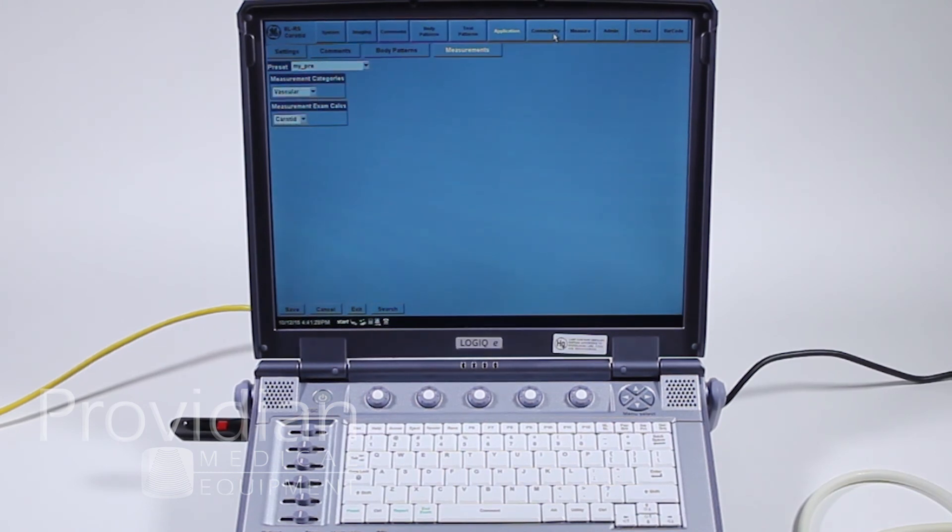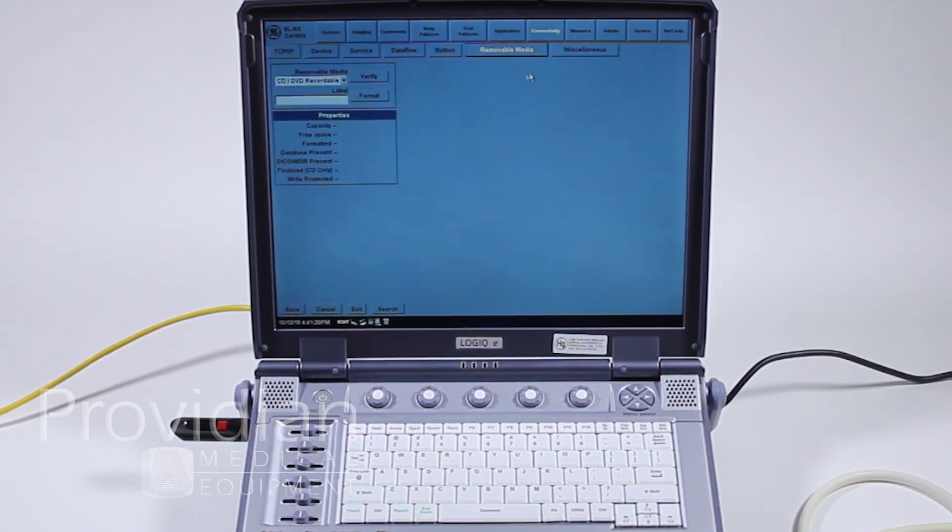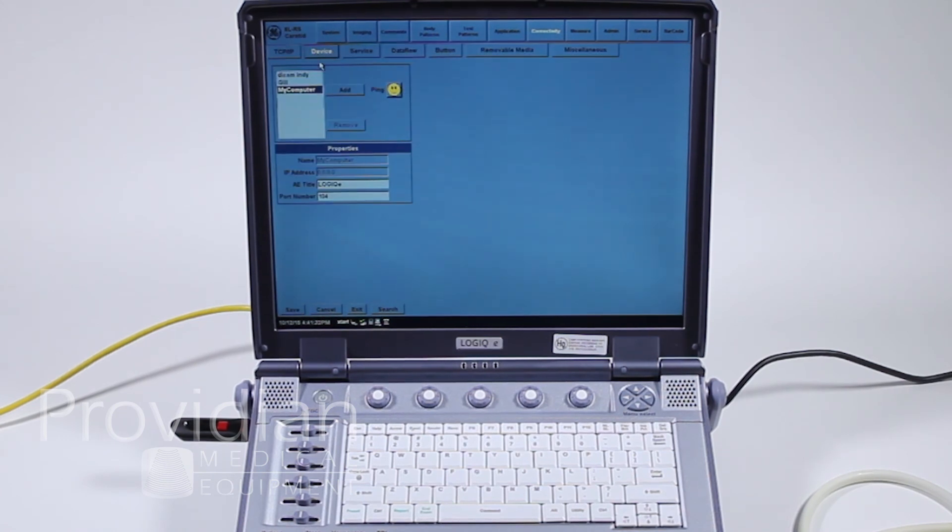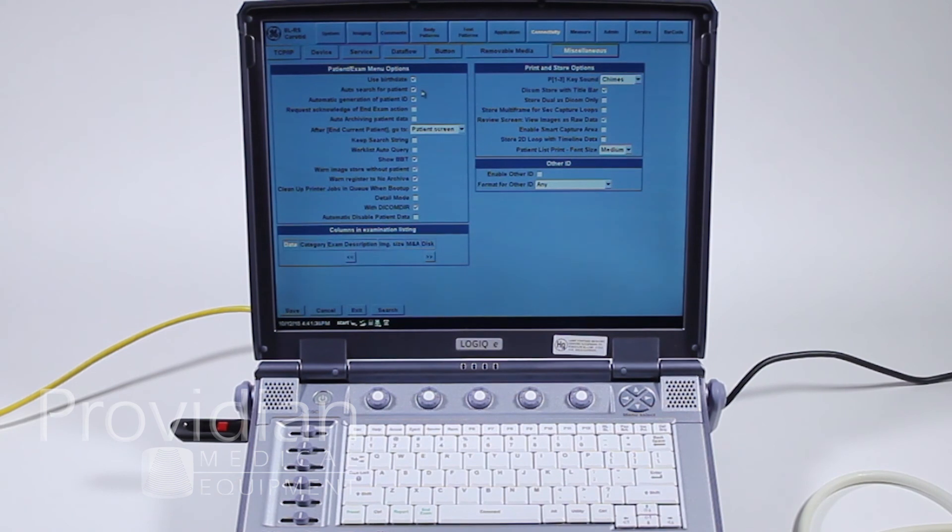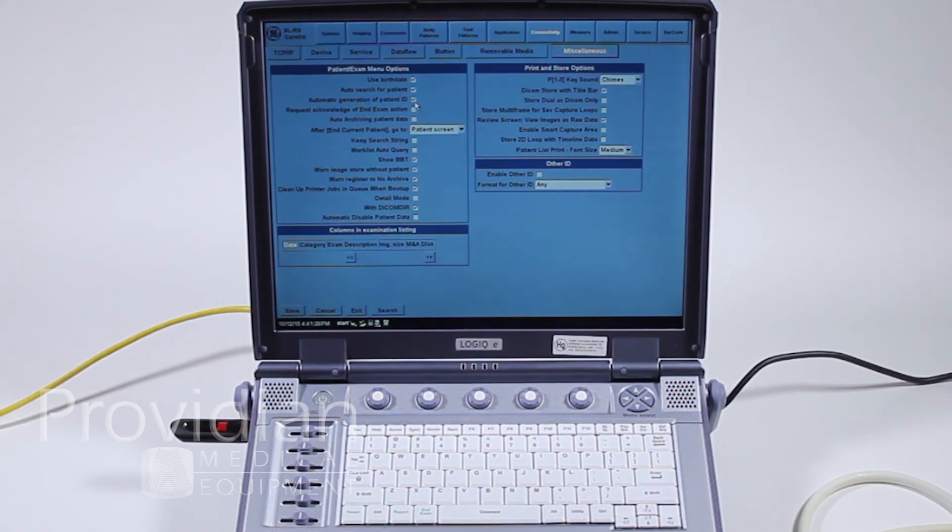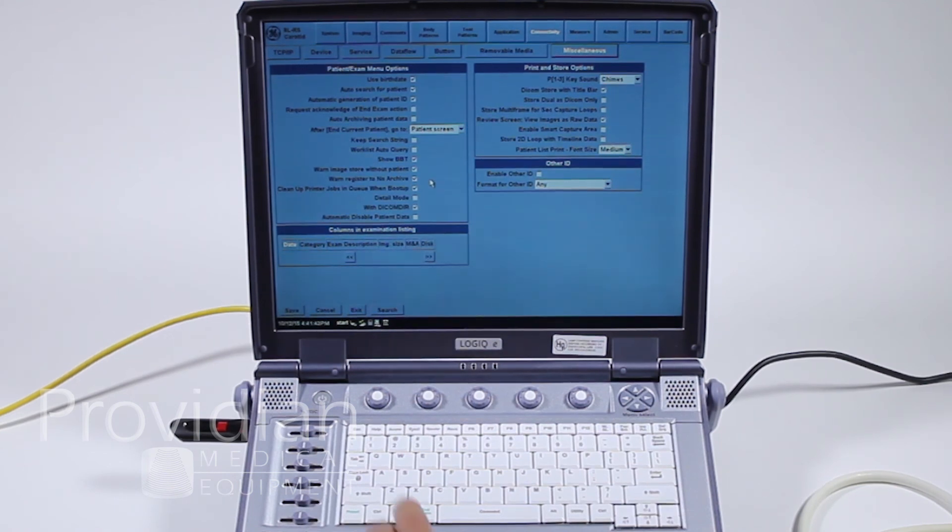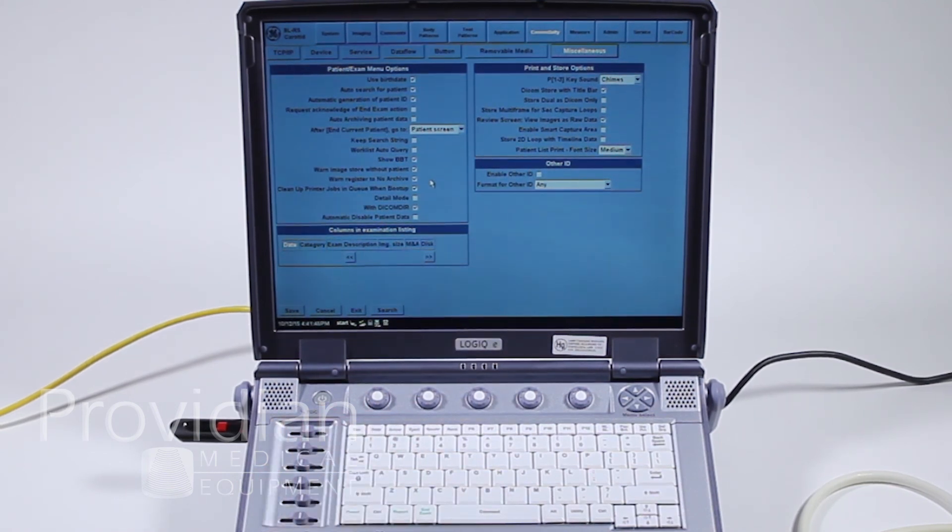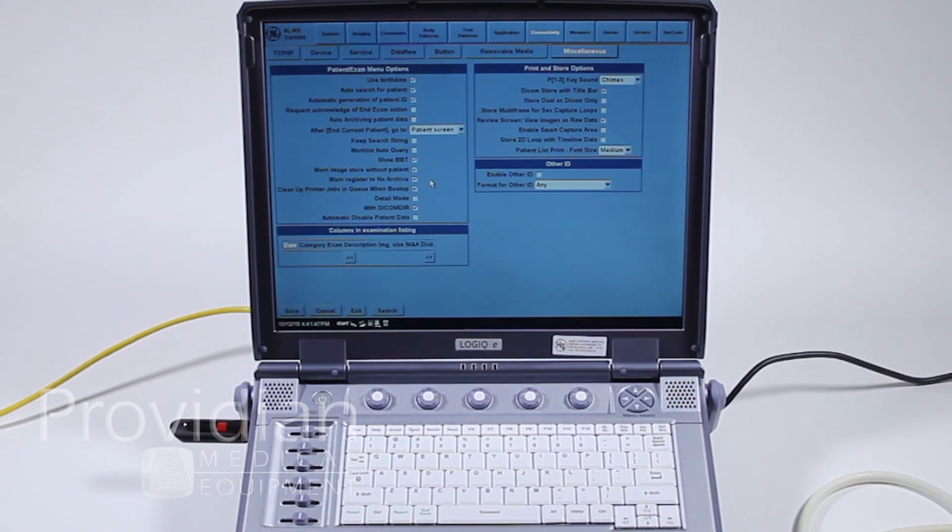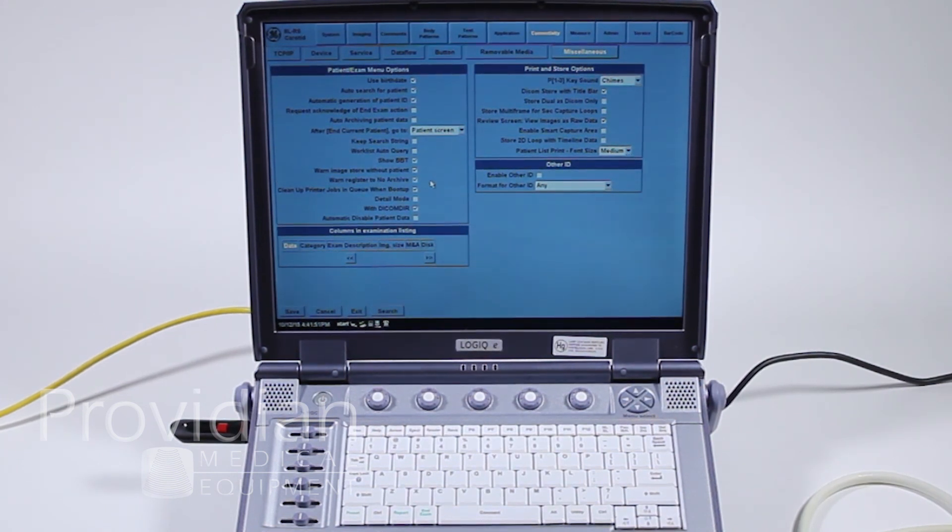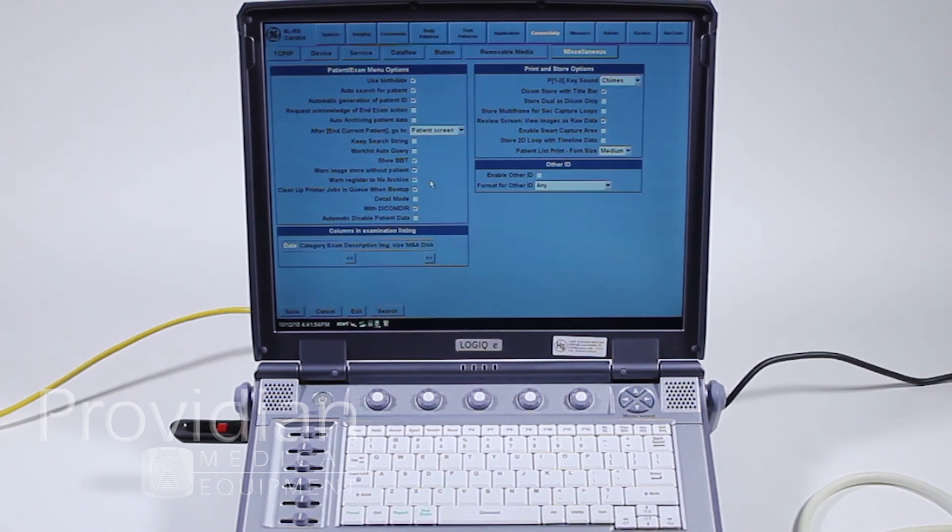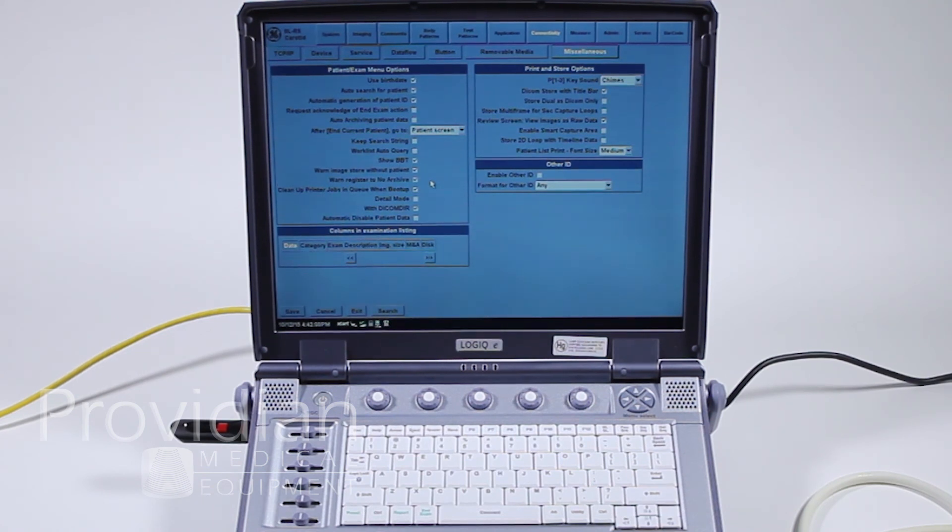We addressed the connectivity and this is a fairly deep item here. And at this point, we'll take a look at the miscellaneous items where we talked about auto-generation of a patient ID, auto-archive patient data. A lot of these things, you'll want to go to that help menu, which I showed earlier on. And you can research as to what these do. Sometimes the description is good. Sometimes it's really poor. But if you want to do a certain thing, you can go to that help menu and it is searchable. So if you have specific questions about what you'd like to see, you can type it in there.